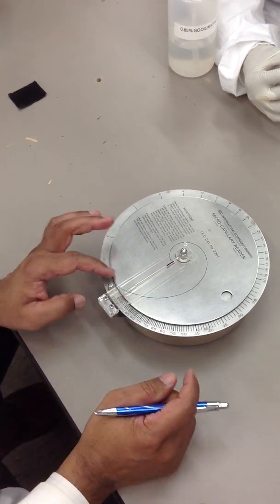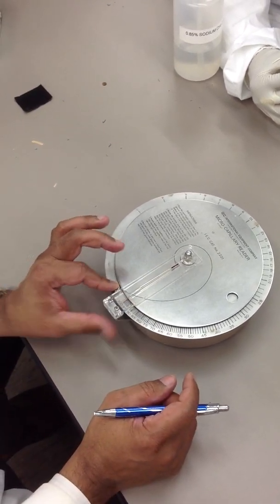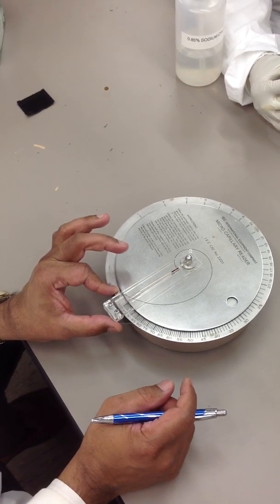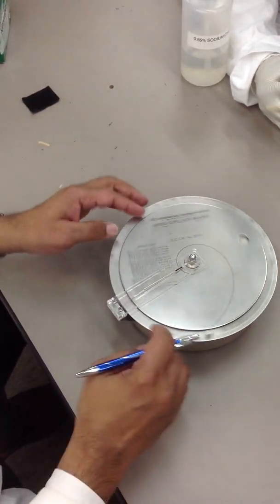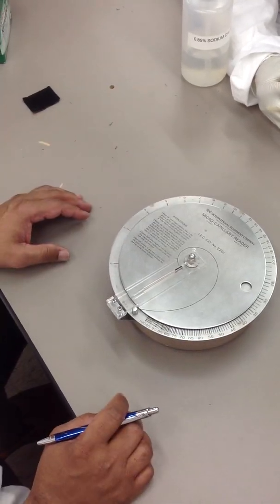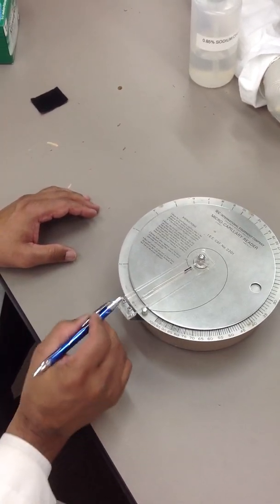So, that red... See, the red line should be... When you put it like that, it should be on 100%. You don't want it like that. The 100 is there. It's not on the line.